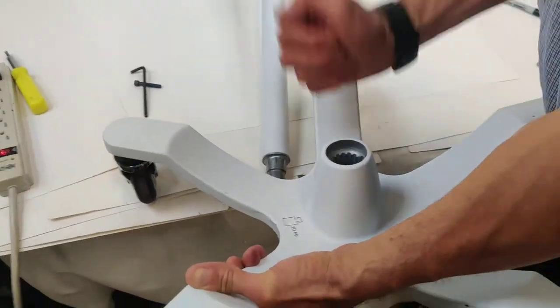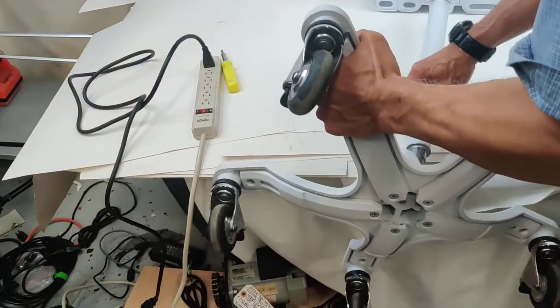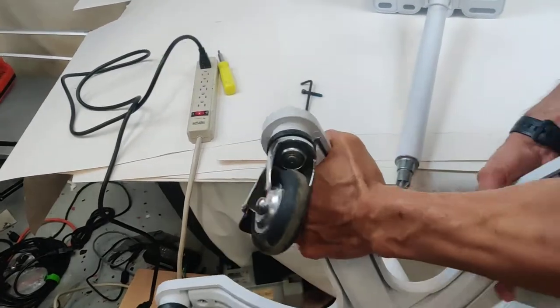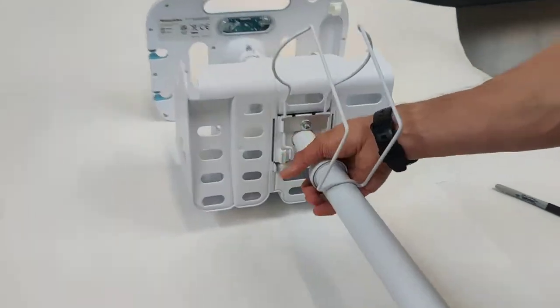So you need a rubber mallet. You must plug it and pull down. Okay, now here.